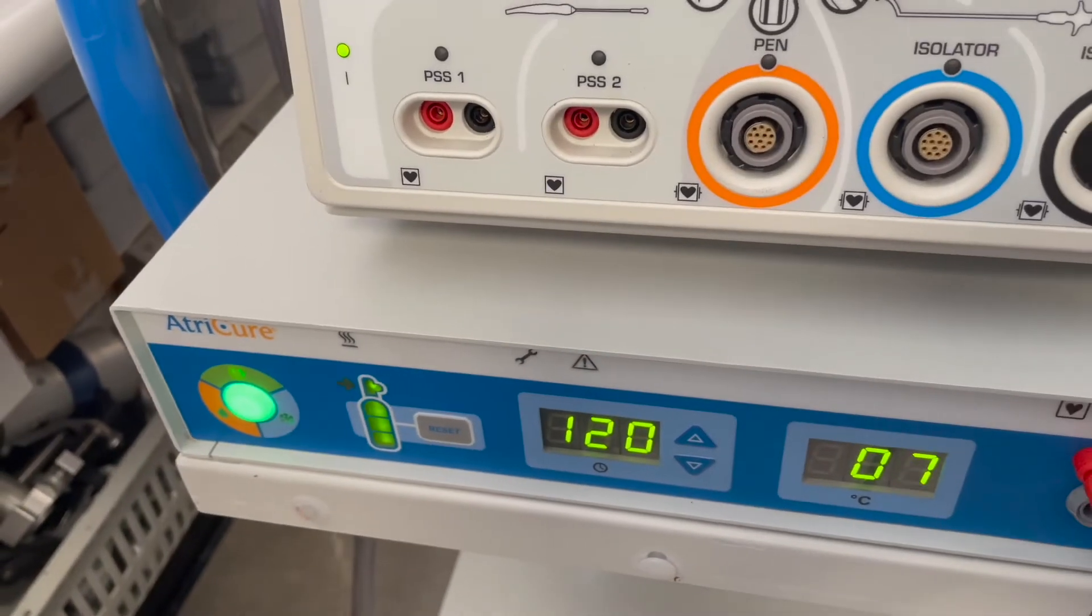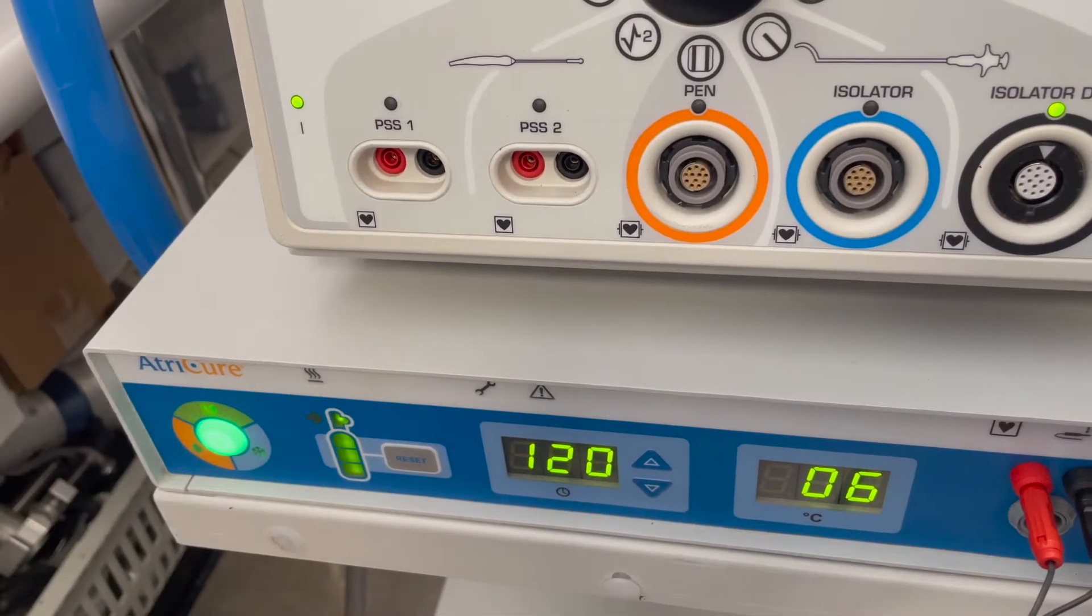Defrost it pretty quickly, and now it vents itself and it's back on standby ready for the next ablation.